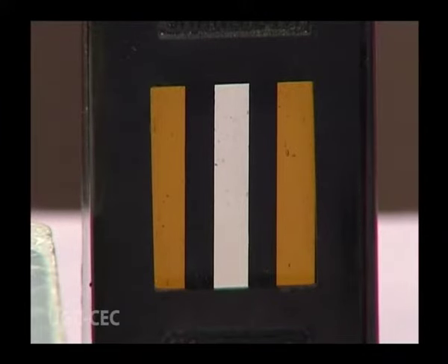Now let's move on to our experiment. The aim is to find out the hemoglobin levels in a given blood sample — I am going to use my own blood. The principle of this experiment is: we take blood and add 0.1 N HCl to it, which converts hemoglobin to acid hematin, a brown-colored compound. We then compare this acid hematin with a standard brown color to measure the hemoglobin levels.